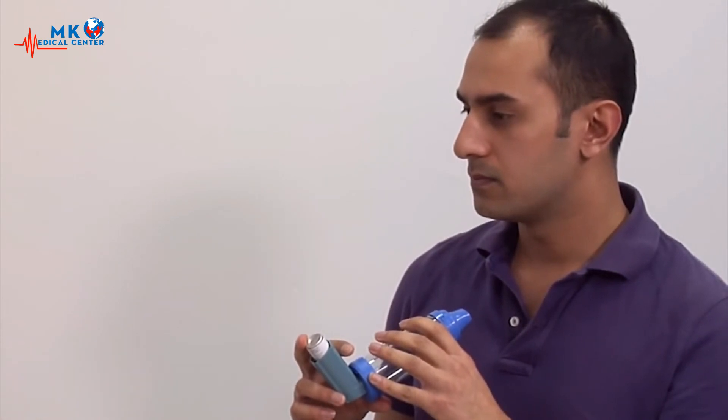And then hold that for 10 seconds. Okay, very good. And so the good thing about this device is that it'll make a whistling sound if you're breathing in too quickly.